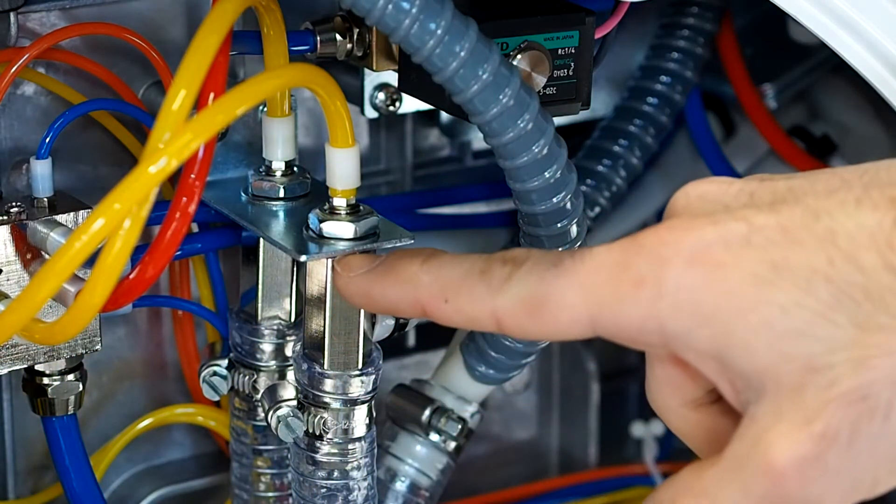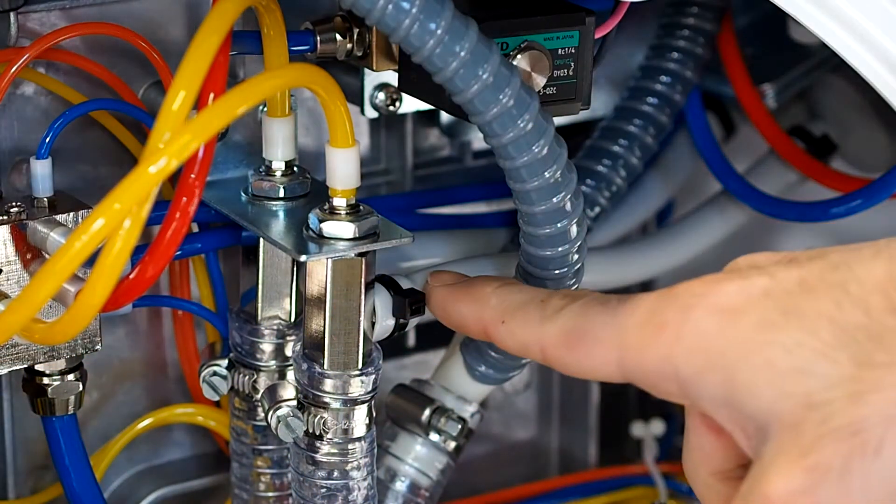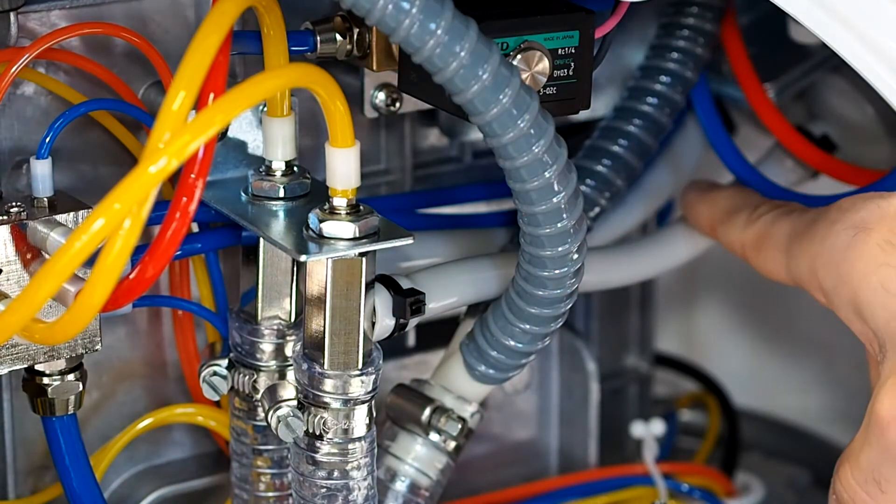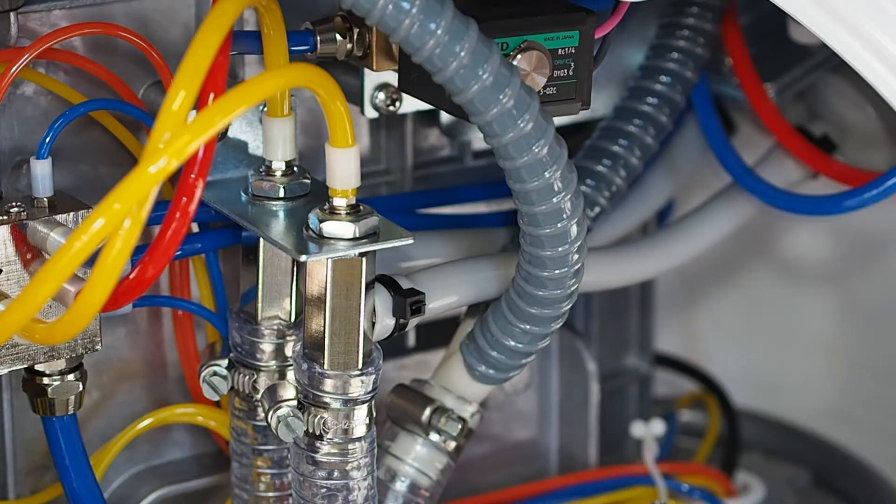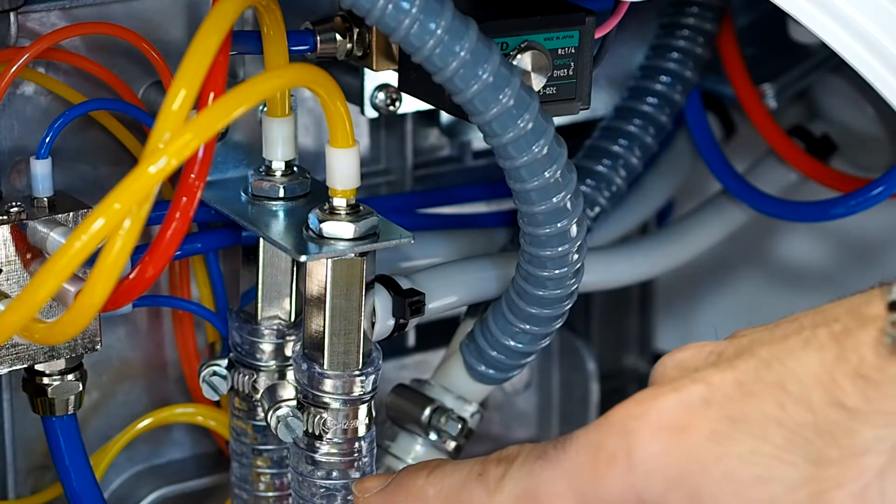This creates a strong depression inside the valve and generates a vacuum in the suction cannula tube. Everything that enters the valve is sent to the base of the dental unit through the drainage tubes, one for each valve.